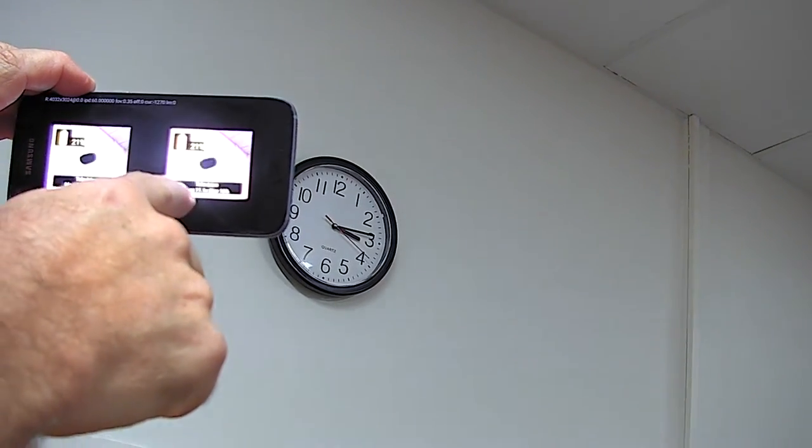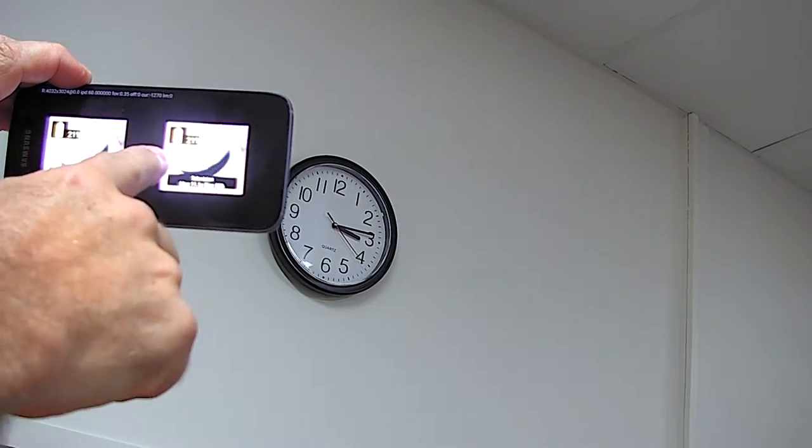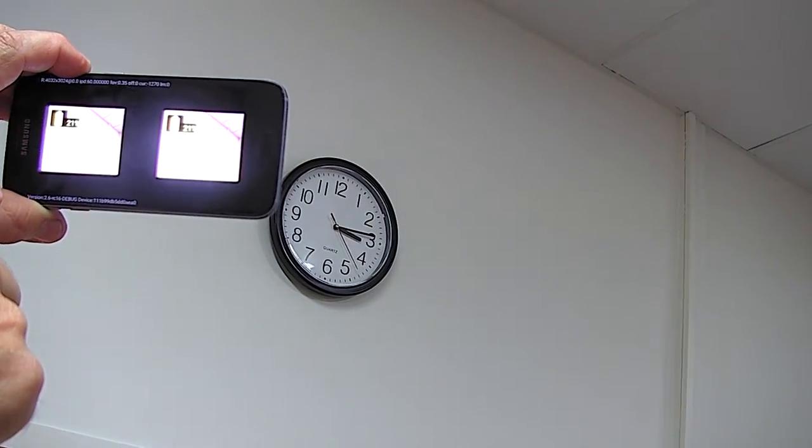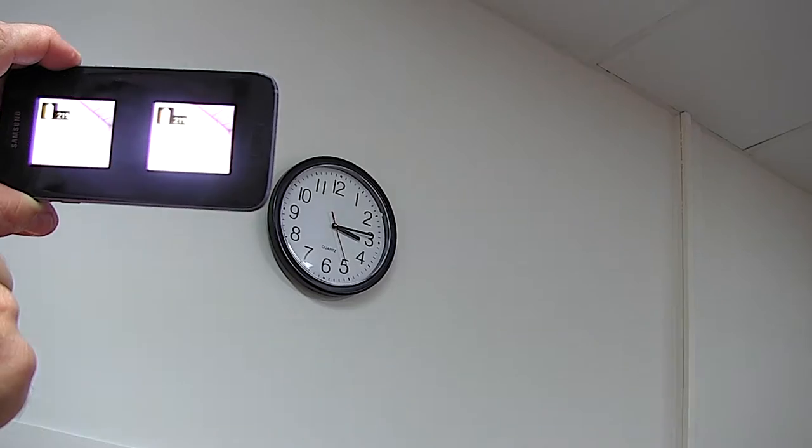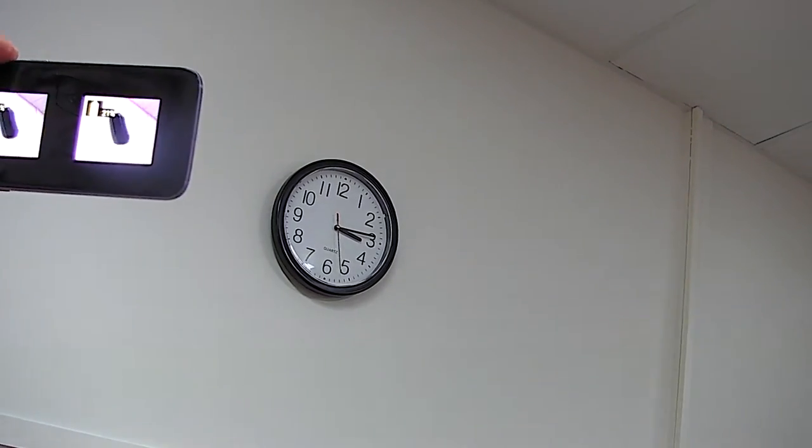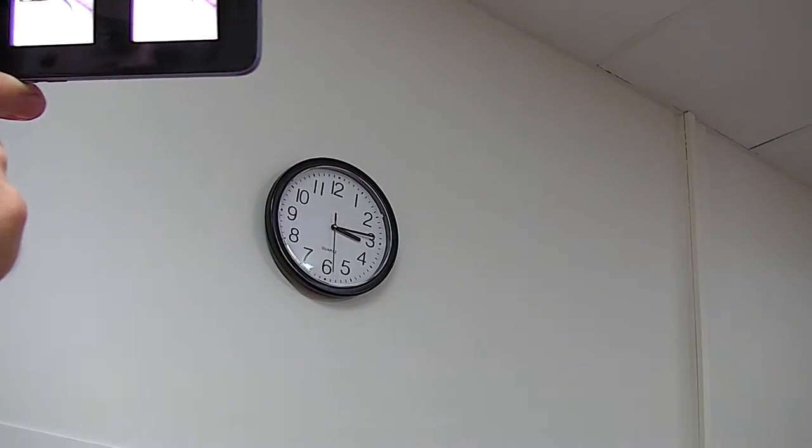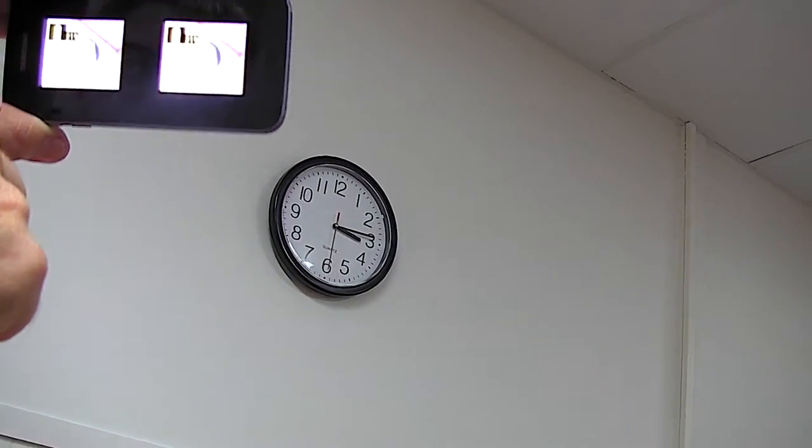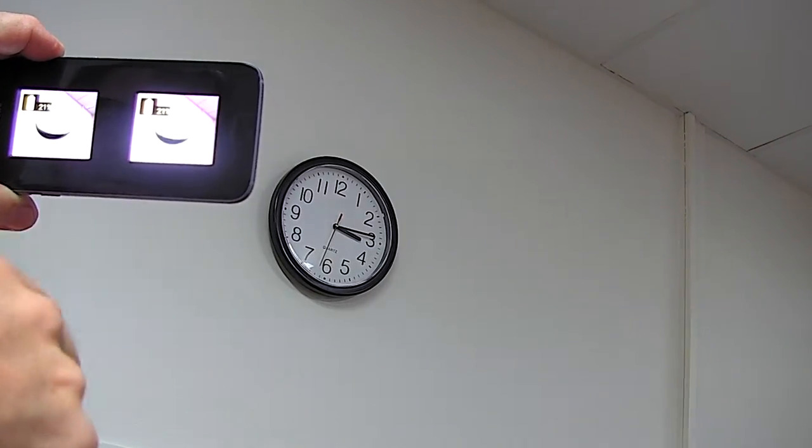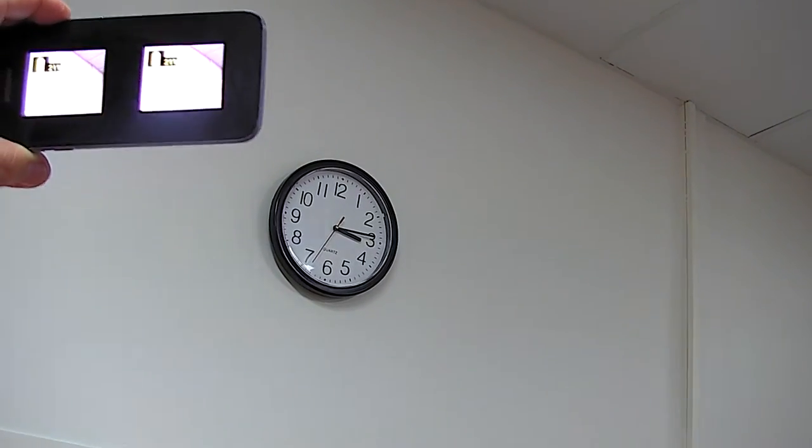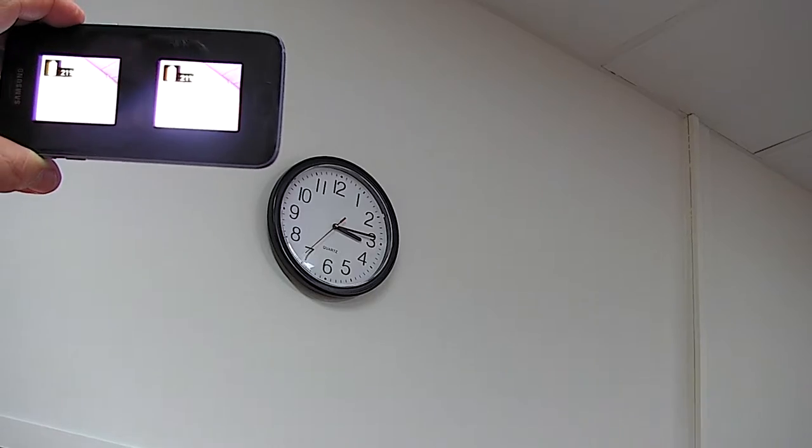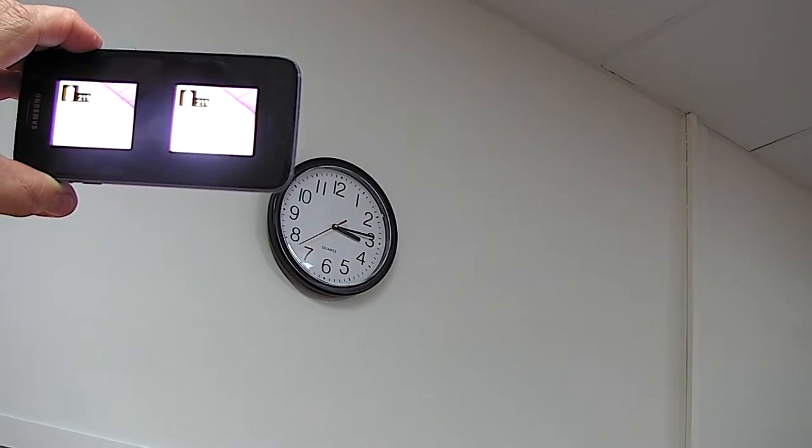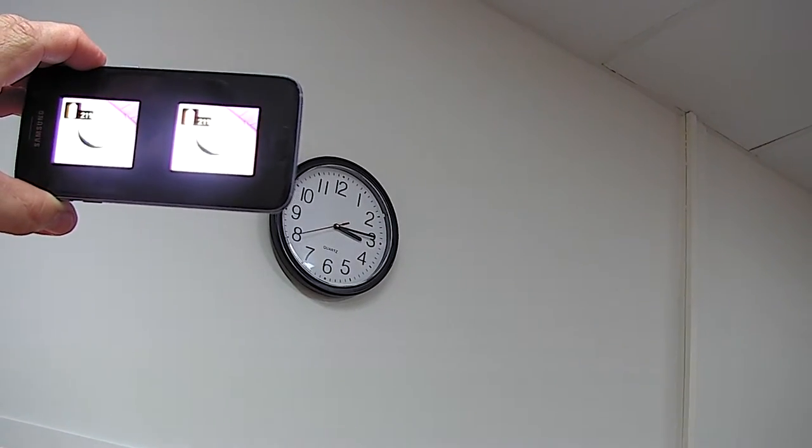That's adjusted by a swipe, and I can find a point where, for example, I can see a magnified portion of the clock. As I move around, I can magnify other parts of the clock, but the surrounding field of view remains at one times magnification, which gives a sense of context.